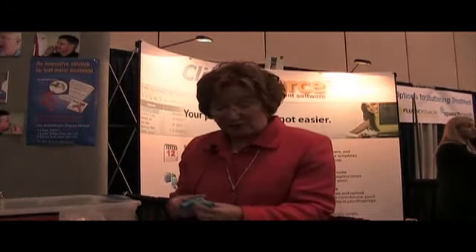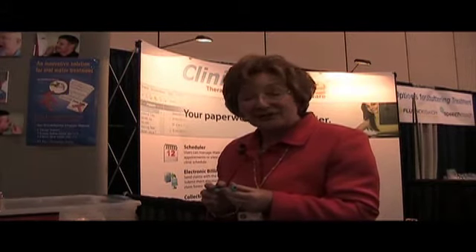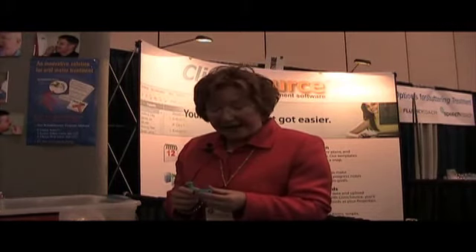The next size is one of our newest Chewy Tubes — the blue Chewy Tube. This is a very firm Chewy Tube. It's used with teenagers who may have sensory integration needs, autism, or beyond that on the spectrum. It's also used with adults who have developmental disabilities.